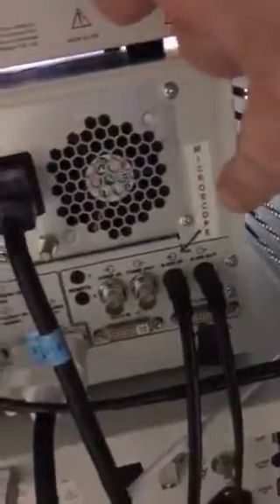There are also connections in the back of the tower, but we don't mess with that stuff. Your S-video in and out should all be left alone. It comes from this black little box in the front that's hooked up to the microscope. If you did have to troubleshoot, just make sure those are plugged in, because sometimes they get unplugged.